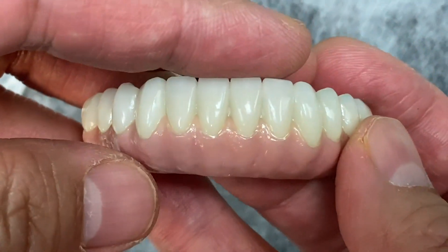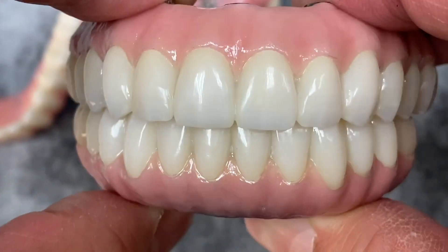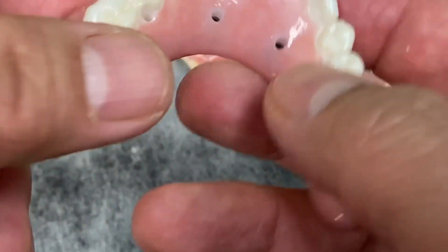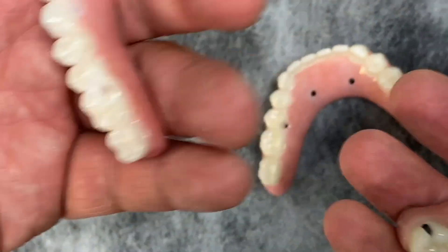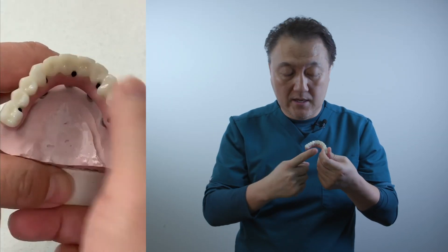The final issue I addressed: on the monolithic zirconia, the lingual side is really fat because of the implant direction — same problem on the other side. But on the 7 Star, the tongue side is exceptionally thin and smooth, regardless of implant direction. That's the key difference.